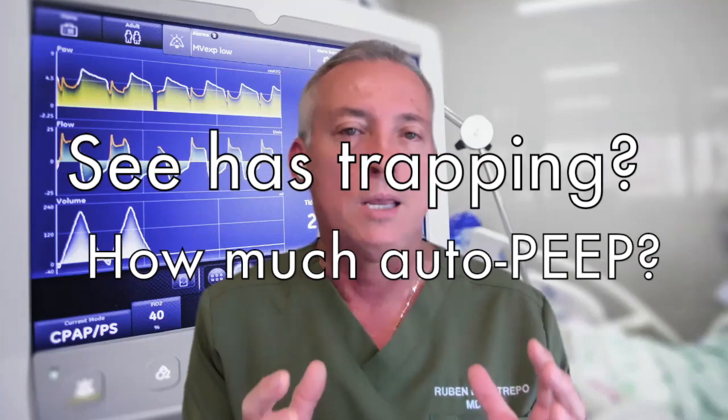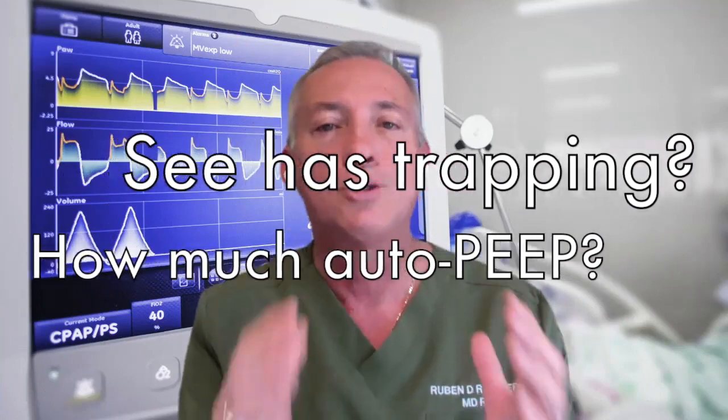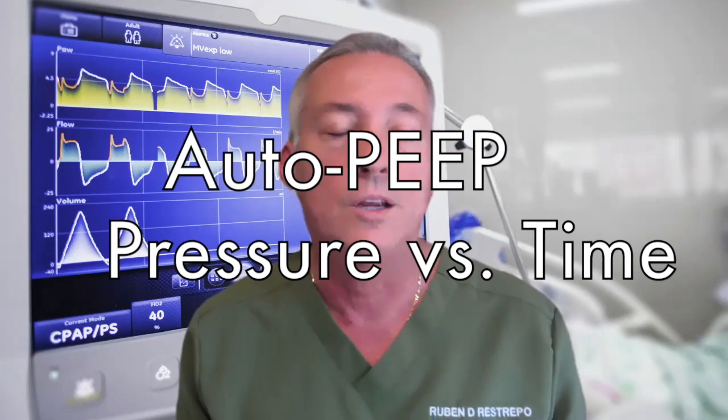The next step is, yes, you can say, well, I'm going to slow down the respiratory rate. I'm going to change the I:E ratio to allow more time for these patients to exhale. What you need to also be aware of is how much auto PEEP this gas trapping is associated with. What is the unit for auto PEEP? The unit for auto PEEP is centimeters of water. It's not liters per minute.